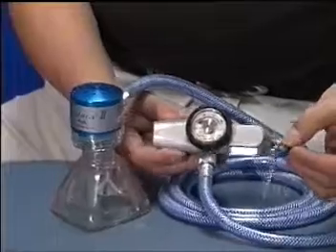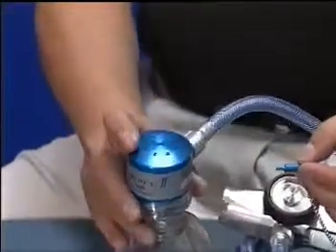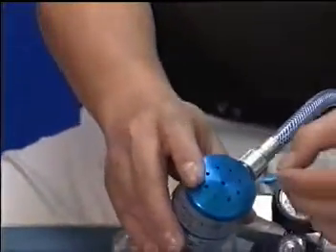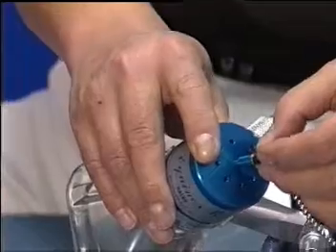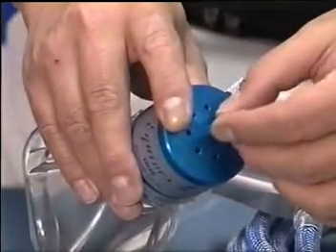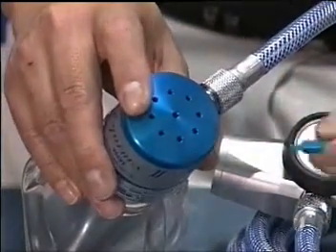After use, and with the gas supply turned off, the remaining gas in the system can be bled off using the bleed pen supplied with the complete Equinox II analgesic gas system.